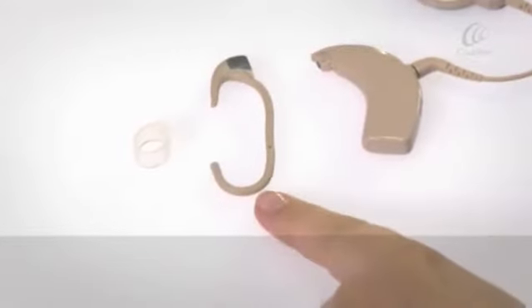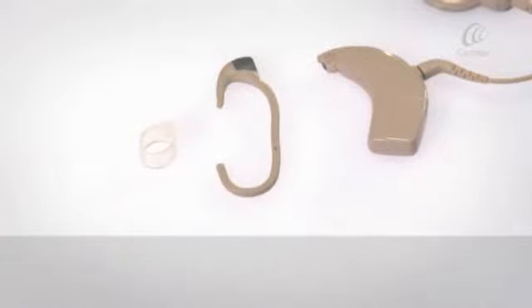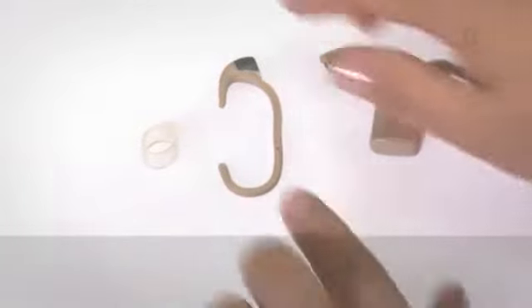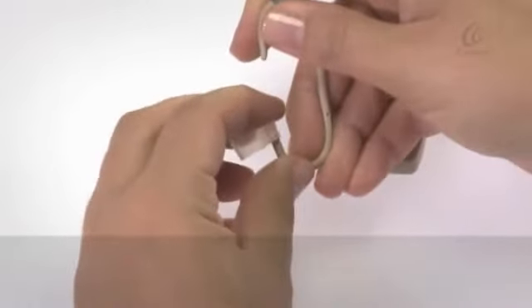The smallest SnugFit comes with a SnugFit band to fix it more securely to the processor. Thread the SnugFit band onto the SnugFit.